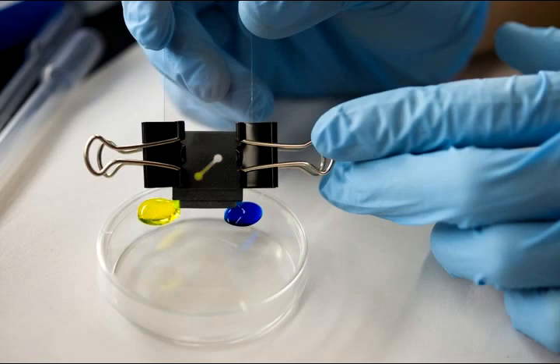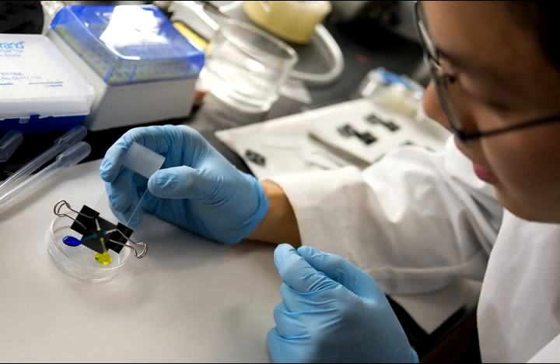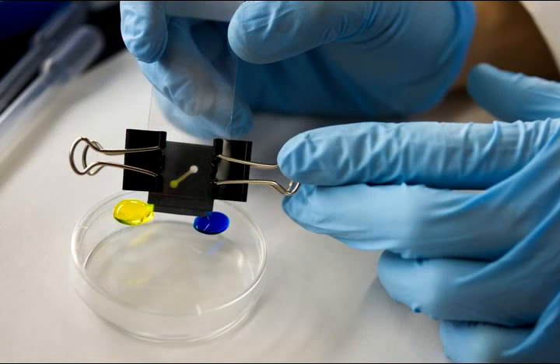So blood, urine, saliva—they'll avoid the wax and flow into these channels. And embedded in these channels are what's called biomarkers. Biomarkers are just substances that react in a certain way when they're in the presence of whatever you're looking for. So if you're looking for some protein that's characteristic of malaria-infested blood, then the biomarkers will react in the presence of that protein. Often they'll just turn a certain color, something that simple and easy to read by eye.